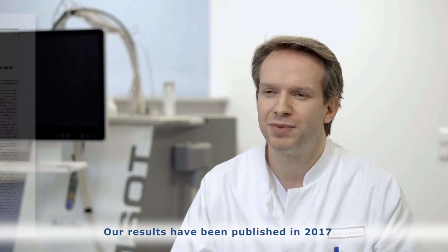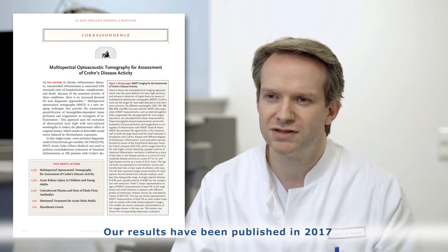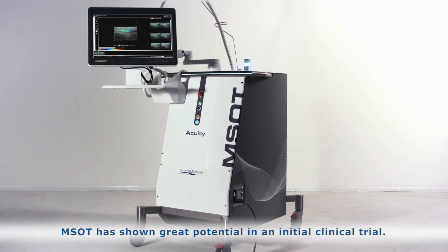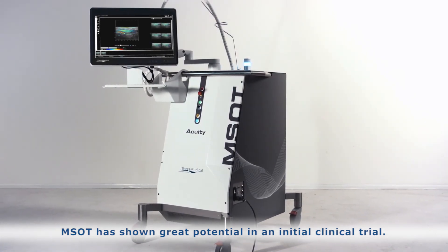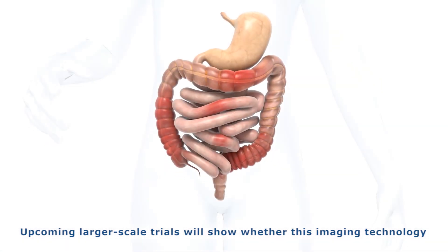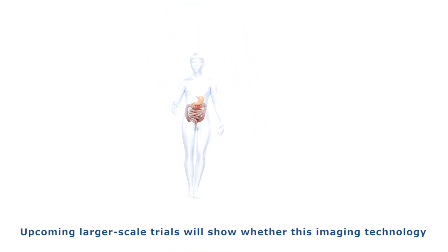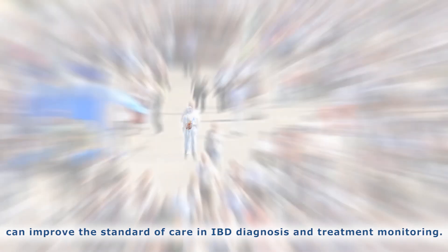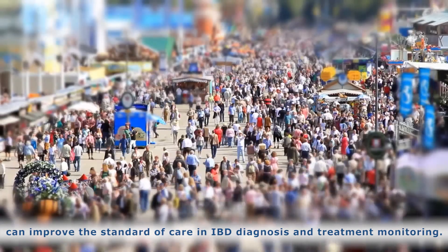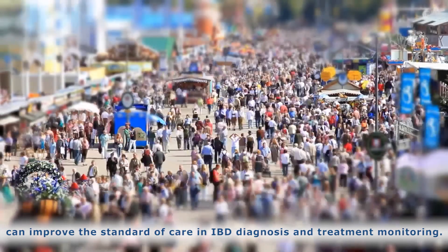Our results have been published in 2017 in the New England Journal of Medicine. MSOT has shown great potential in an initial clinical trial. Upcoming larger scale trials will show whether this imaging technology can improve the standard of care in IBD diagnosis and treatment monitoring.